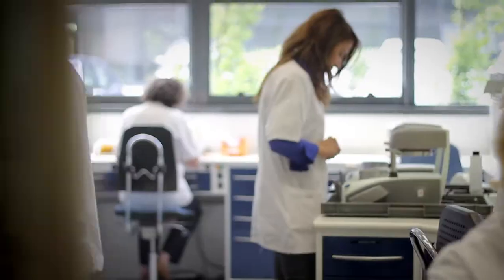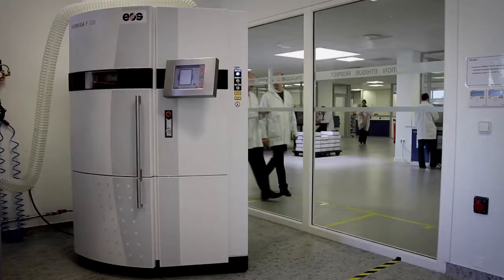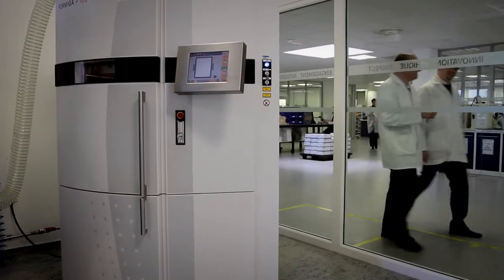Once the design is finalized, the information is digitally transferred to our laboratory, where the device will be produced through highly innovative CAM procedure.